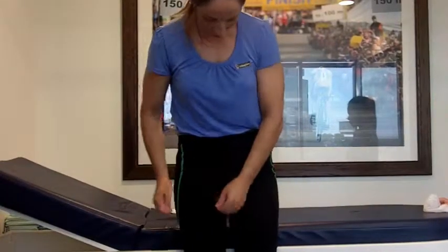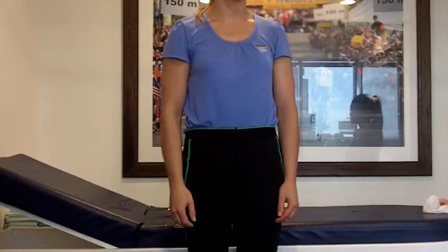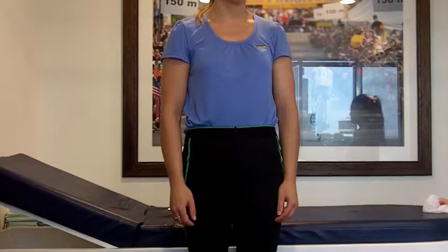It's good to have both the TEDs and the skins on, and then you'll get the maximum protection against both clots and swelling. You can also put ice on top of that to help with the swelling as well.